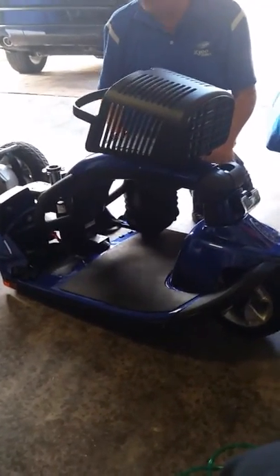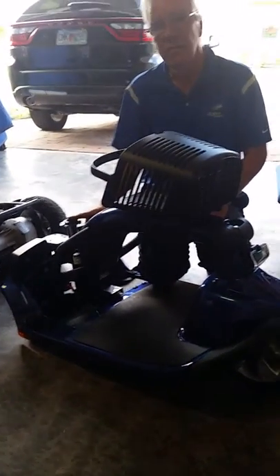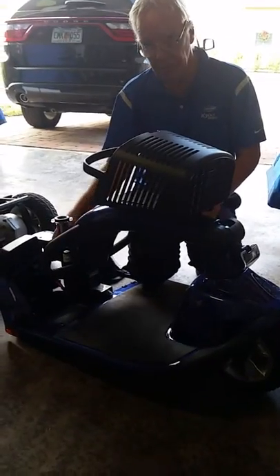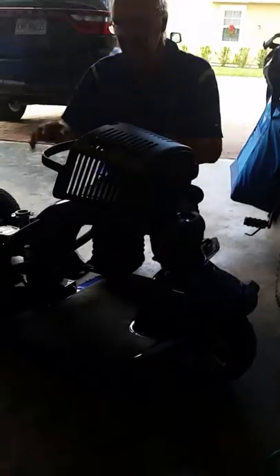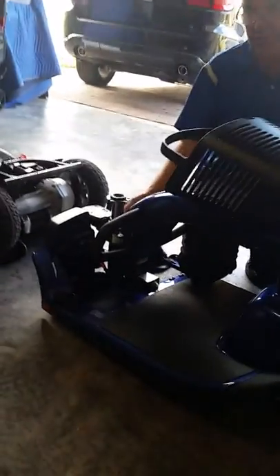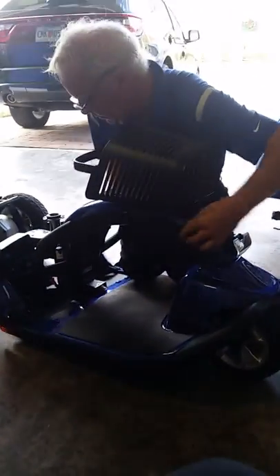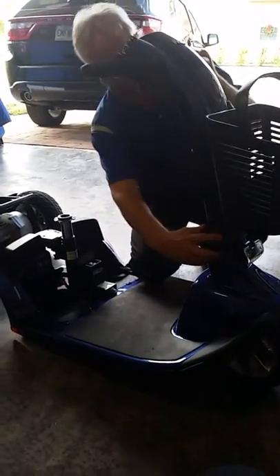When you sat on this last time, were your knees comfortable? Yes, perfect. I can raise and lower this — the posture was perfect, it was perfect for my feet too. There are holes in the silver post so I can raise and lower it. Right here, these two holes — no, that was a perfect fit. I can see it stopped at the right adjustment.